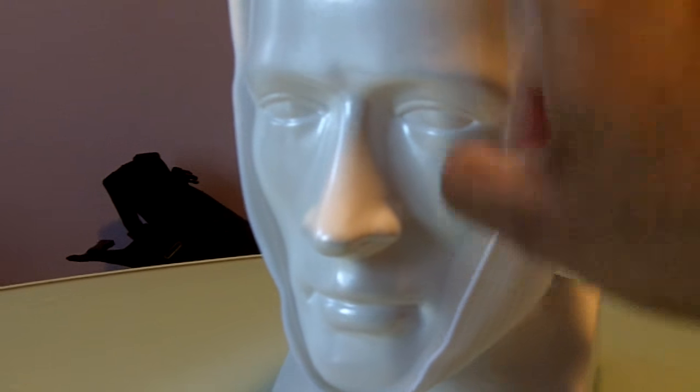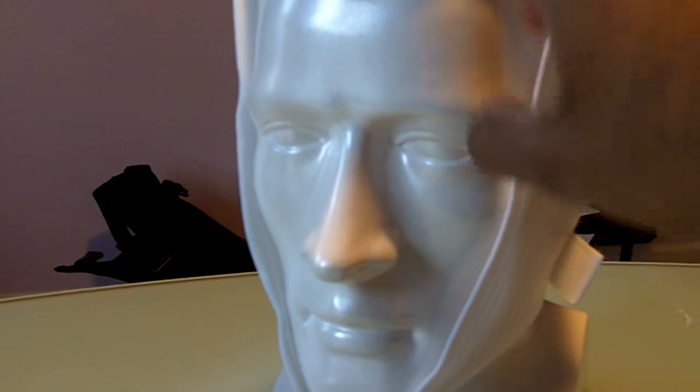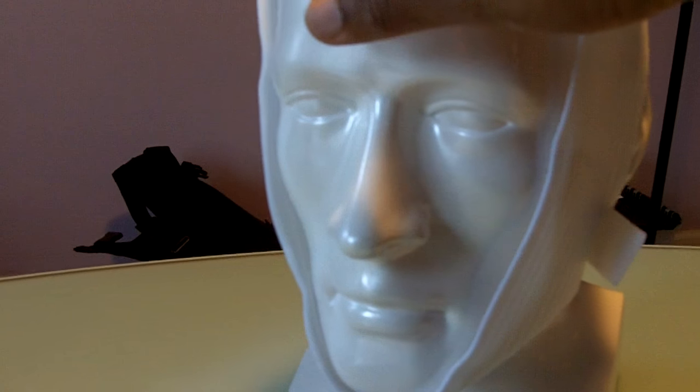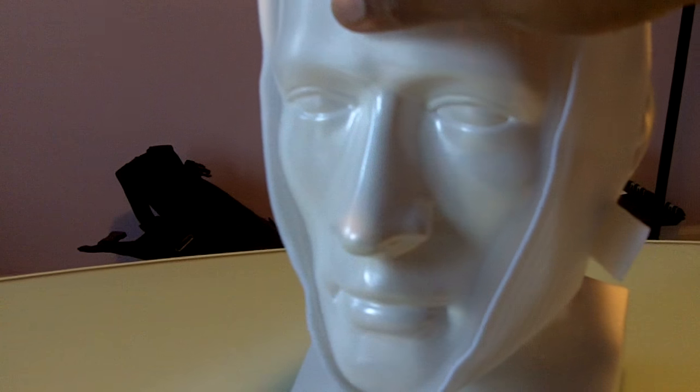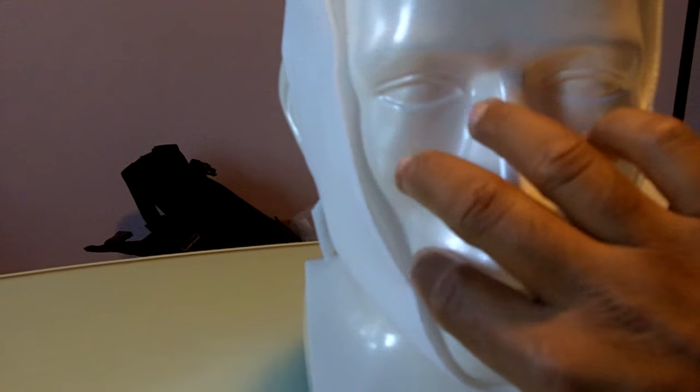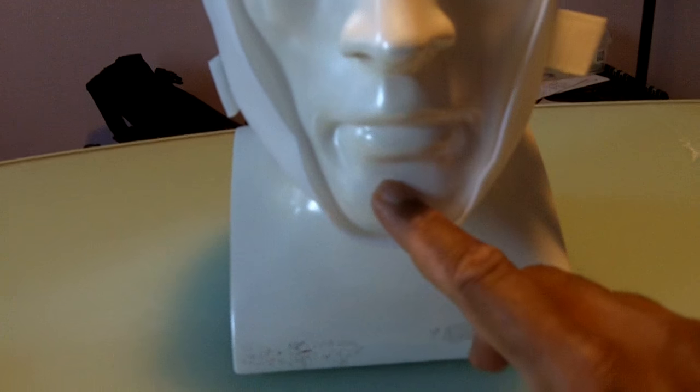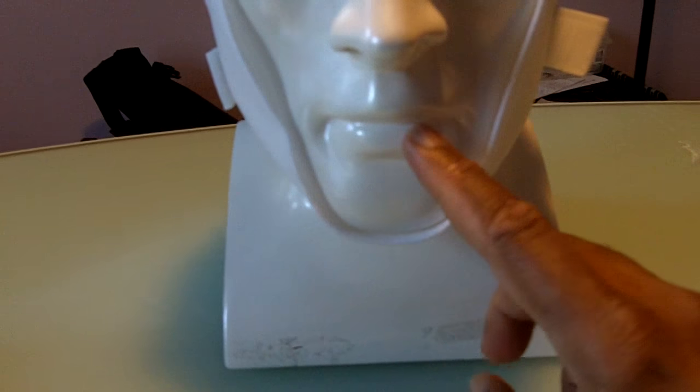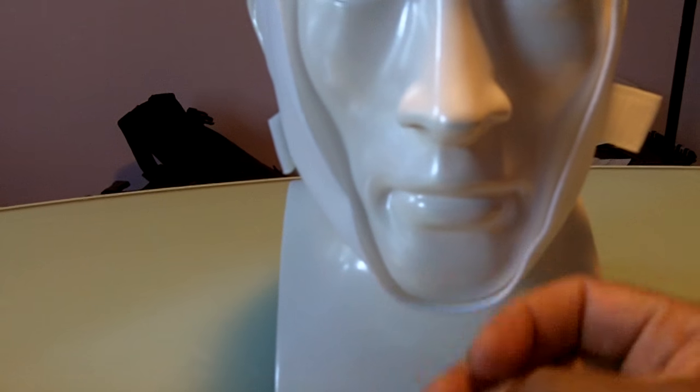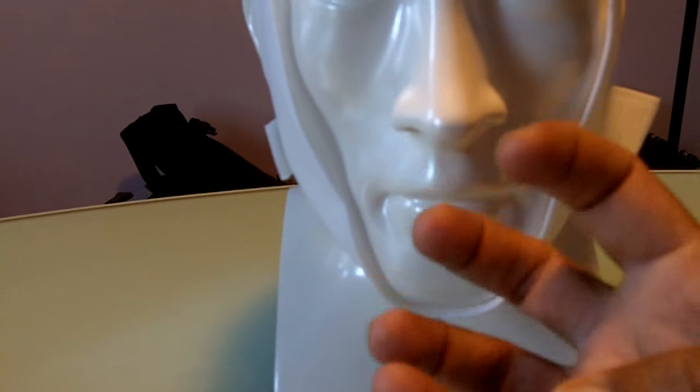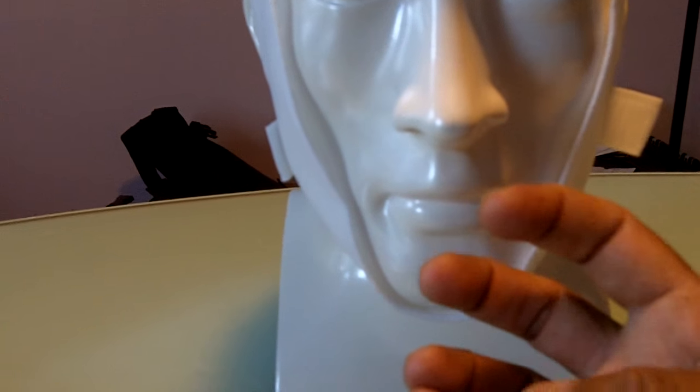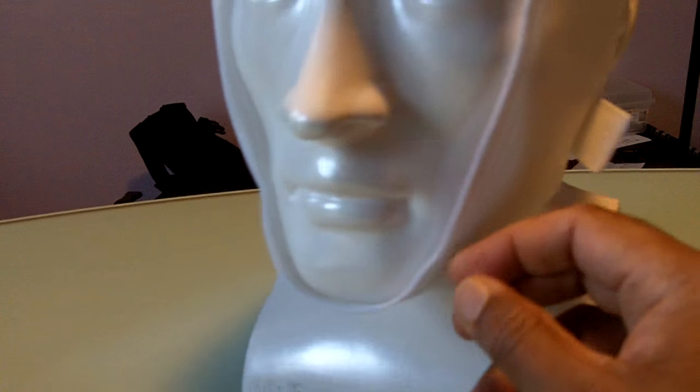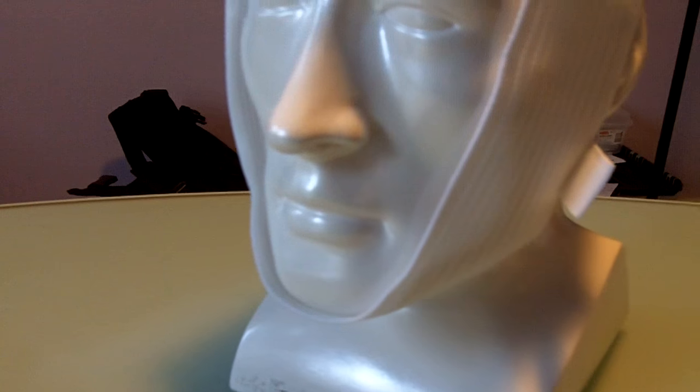But once again, this is very, very good. It really does a good job keeping people who have severe jaw drop. A severe jaw drop meaning your mouth opens so wide that a regular chin strap might not be able to control it. So you need something that's a little strong.